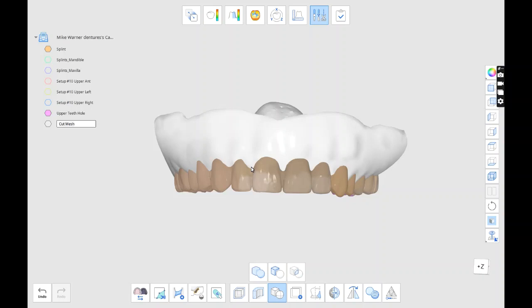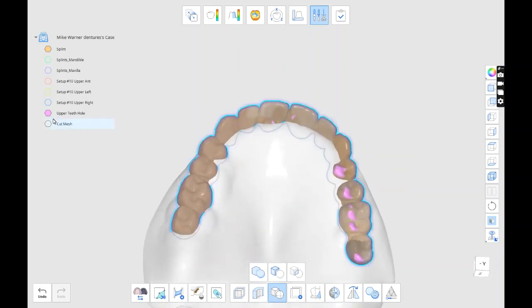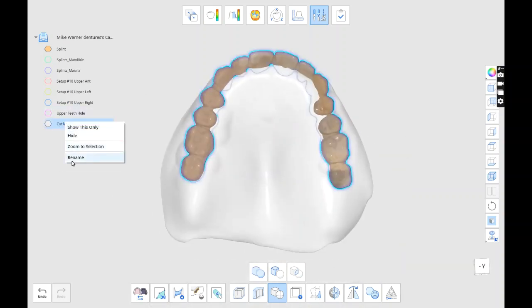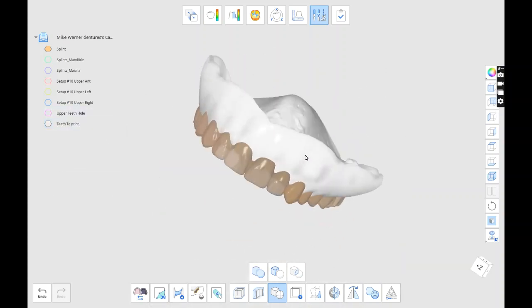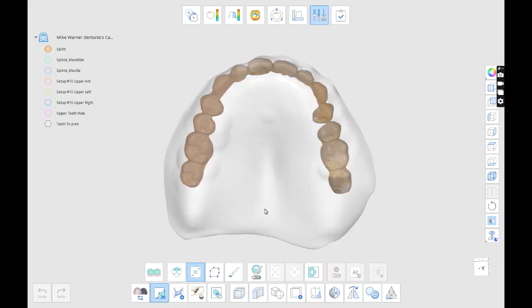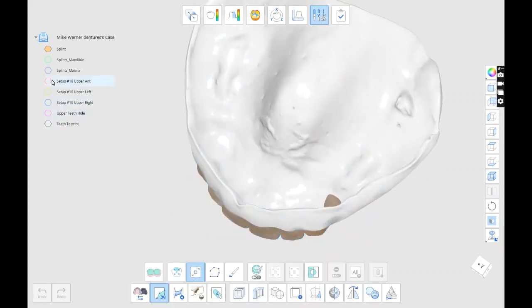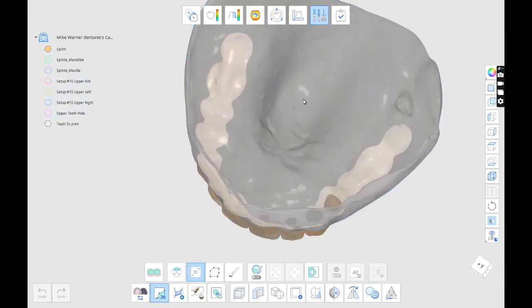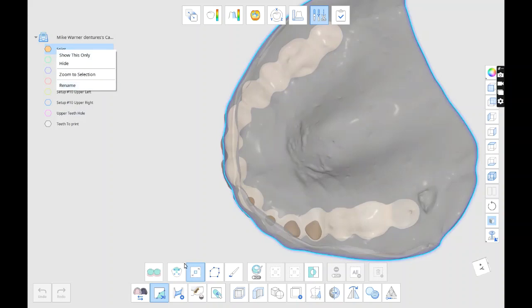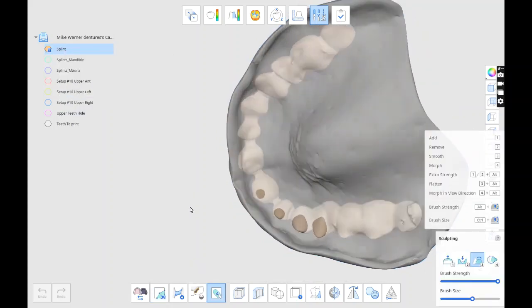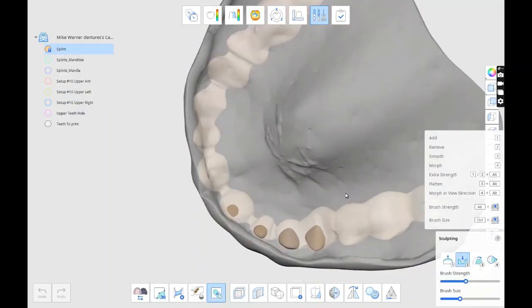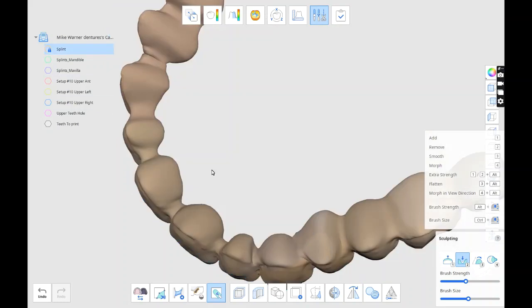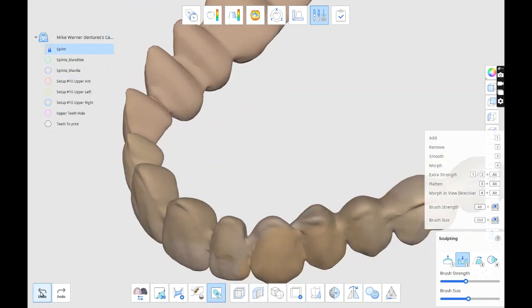And then we're going to do an offset of the teeth to make them a little bigger. And the bigger teeth, we're going to cut away from the gums so there's a bigger hole in the gums. And then we'll be good to go and print. So before I do it, I've got to make sure that it's impinging through the gums right there, so we're going to remove it.